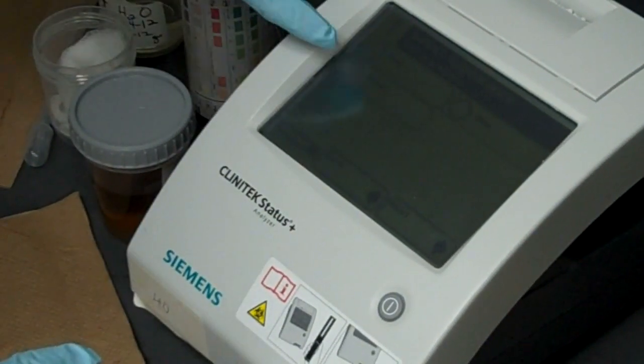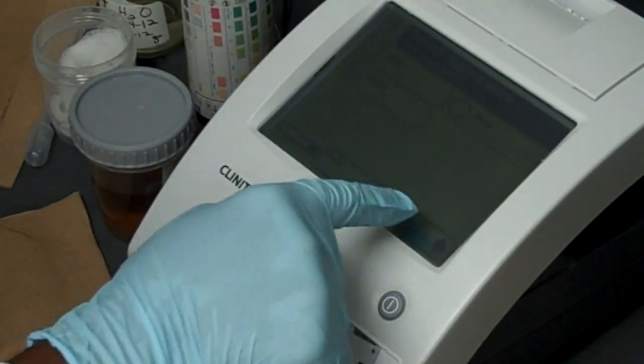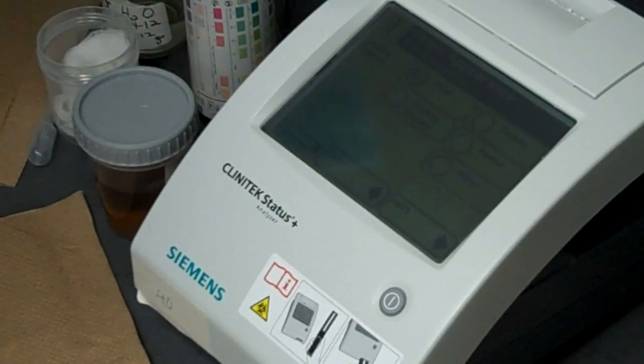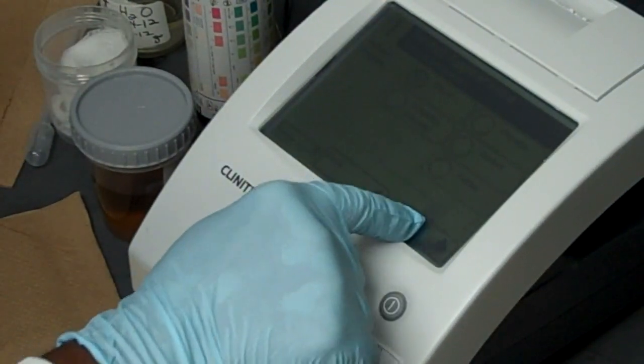It's going to ask for the appearance. If you don't see anything you select other again. And press next. Our urine was clear. So we select next.